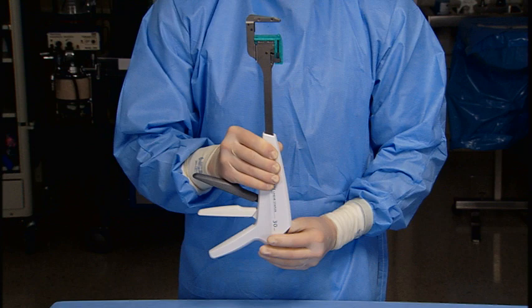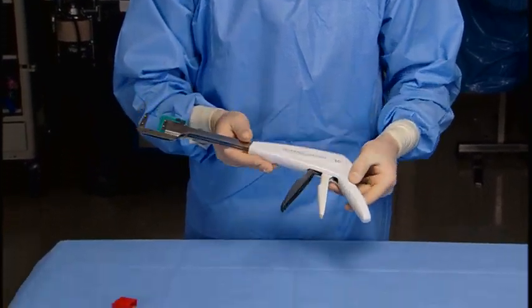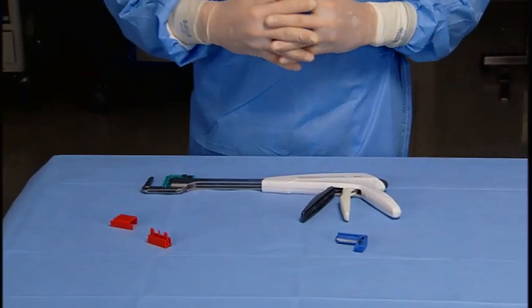After reloading, observe the surface of the new reload. If colored drivers protrude out of the reload, replace with another reload. The linear stapler is now reloaded and ready for use.